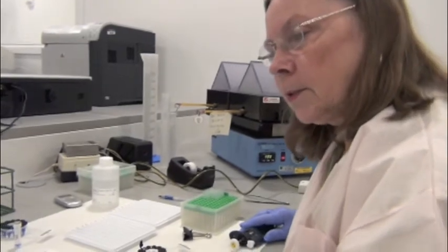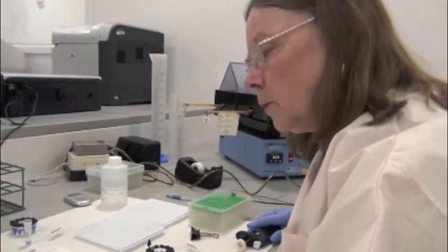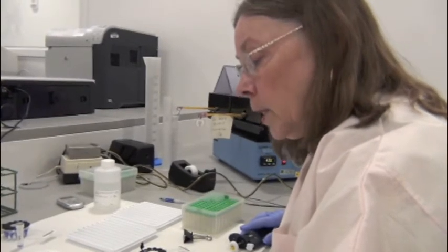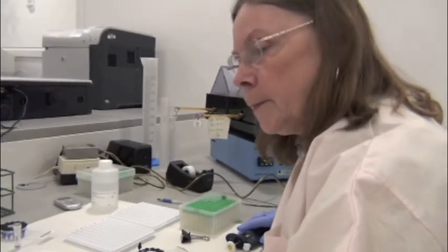All right, but I'm just comparing my list here. So I'm only using the positives. The negatives, of course, we're not going to do. If they don't have any amplicons, they're not going to genotype.